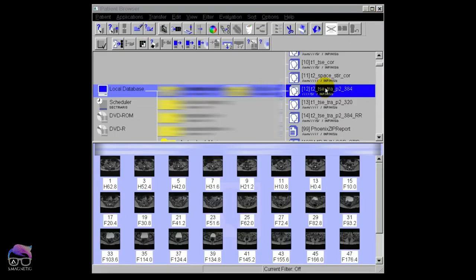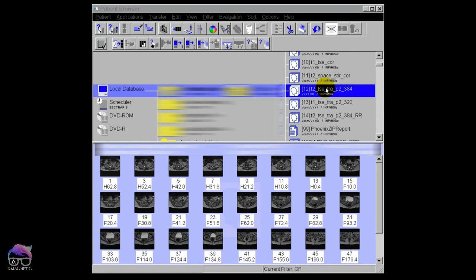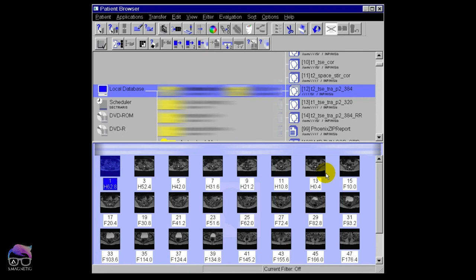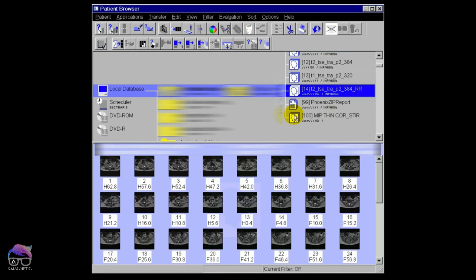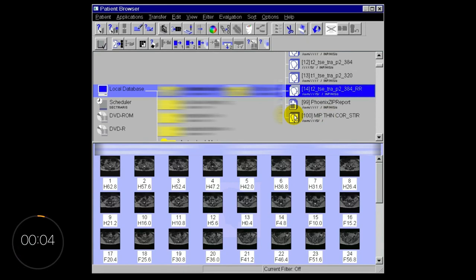The first set of images I had there was missing what was in between—I only had one, three, five. I was missing the in-between images. The new one is down there, number 14. It says RR, which means retrospective reconstruction. Now suddenly I have them all: one, two, three, four, five.